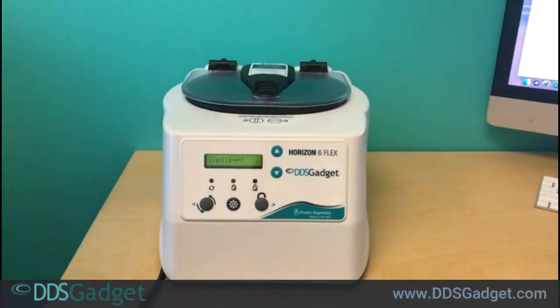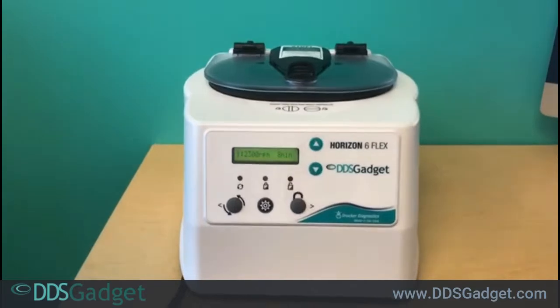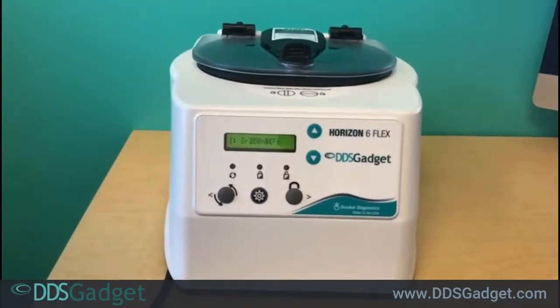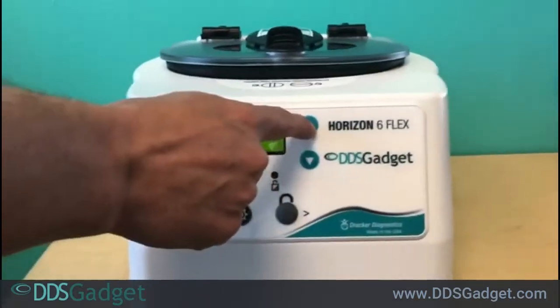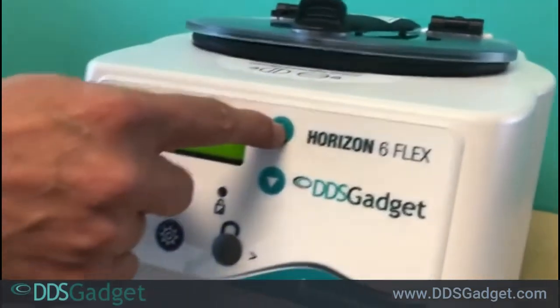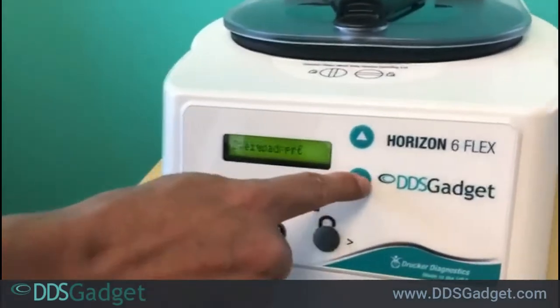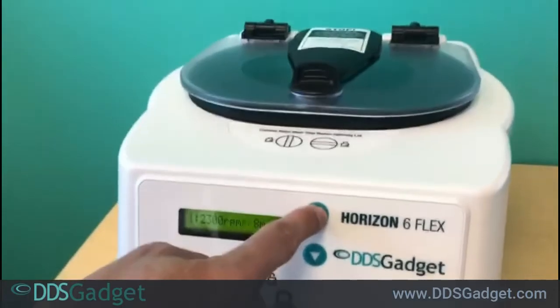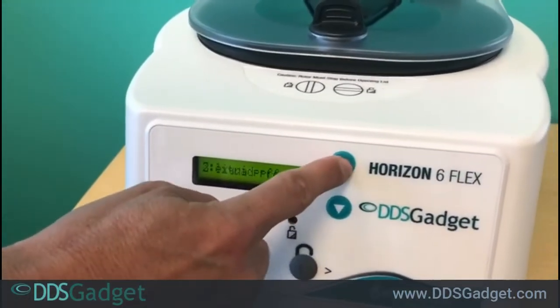In this video we are going to show you how to program a custom cycle. You use the arrows to move to the custom cycle. The machine is preset with two cycles and you don't want to change the first two cycles, so you would move past the first two cycles.